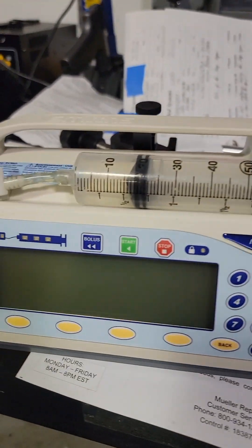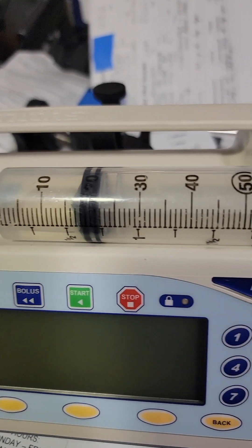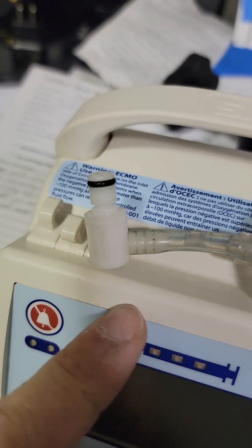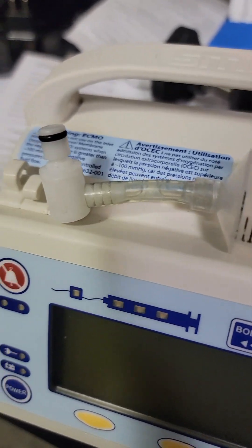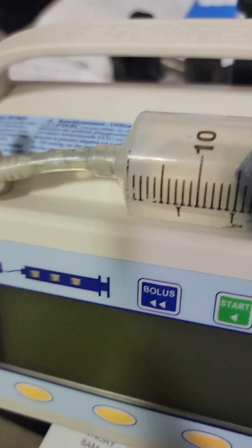This is how it should be loaded. It's best to have fluid in here, not just air, because there's a difference in force when you're pushing out a fluid versus air. I have a hose connector that will connect to this to go down to either a graduated cylinder so I can verify the volume delivered, or just a bucket to get rid of it.